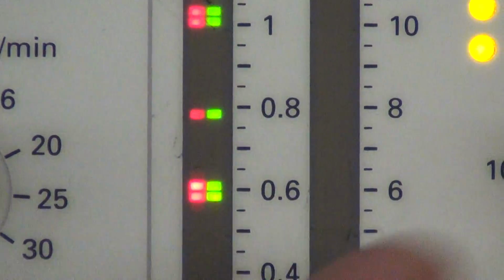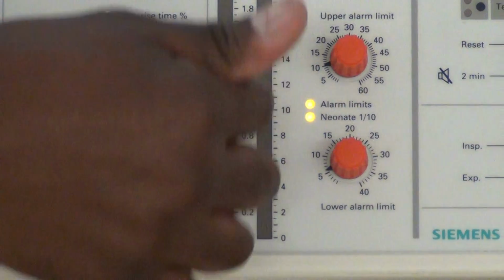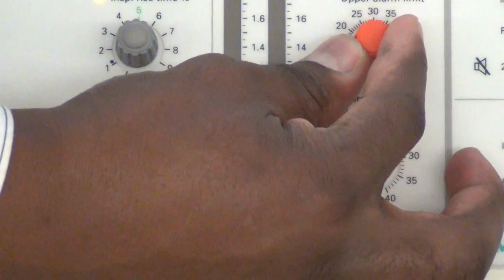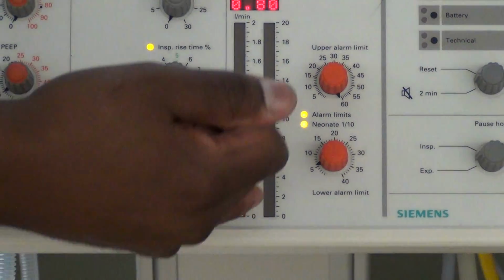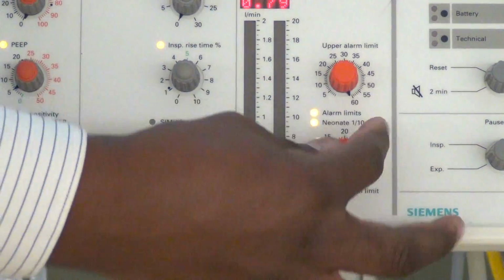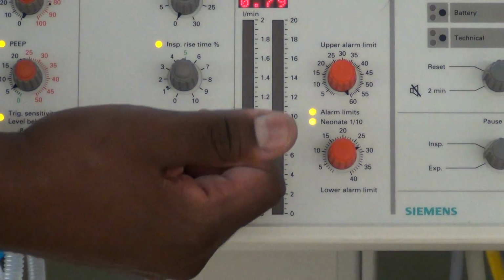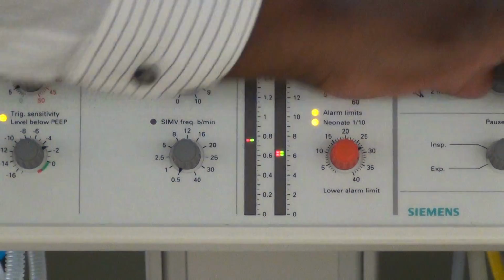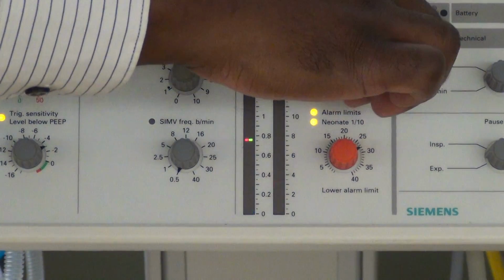Be careful about these alarms because they can actually travel from this side of the bar to this side. Here's our example using our high pressure alarm. It's over here on the other side. The low minute ventilation alarm can do that as well, and notice that it starts flashing. I point that out because from a checkoff perspective, this could be what you walk into with the alarms.